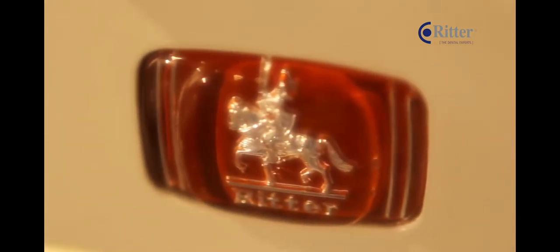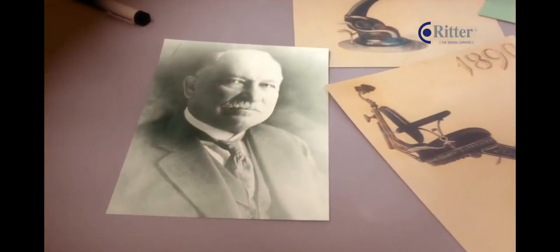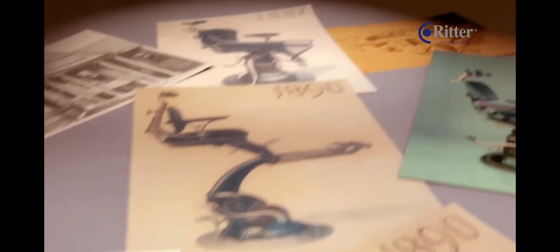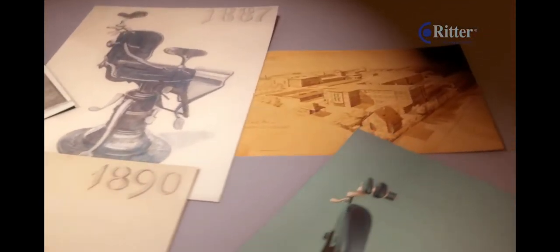Founded in 1887 by the German Frank Ritter, the company now belongs to one of the leading dental equipment providers in the world.